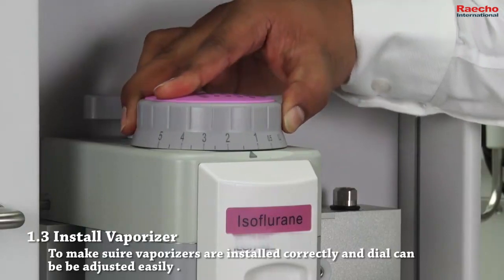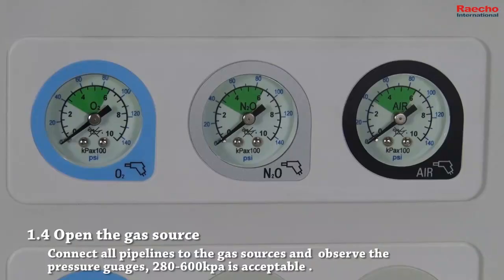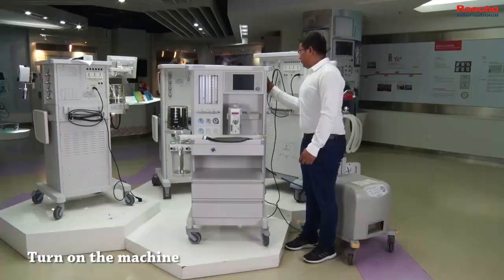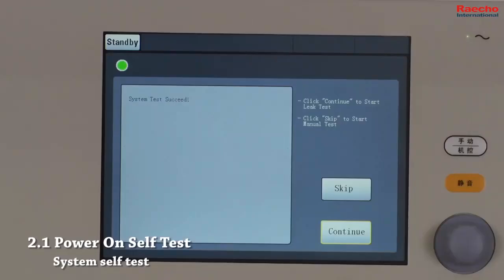Make sure that vaporizers are installed correctly and that rotation is smooth. Connect all pipelines to the gas sources and observe the pressure gauges. Make sure that the pressure is in acceptable limits between 280 and 600 kilopascals. Turn on the machine. After turning on the machine, we can perform system self-test.